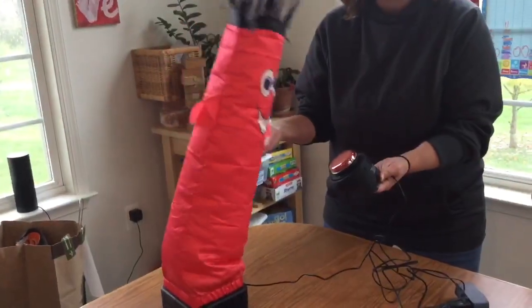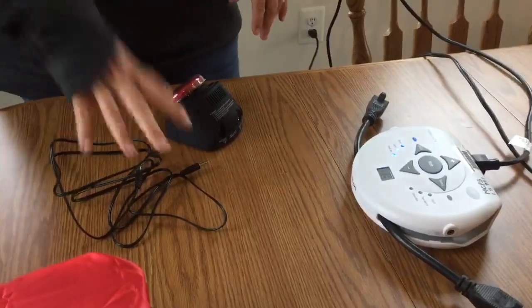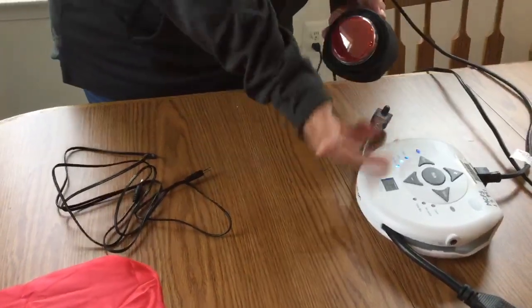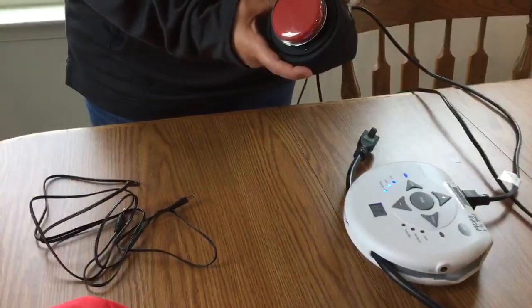And that's it. That's how you can use your step-by-step, your power link, and a fun toy to have tons of fun. Now we're ready to use our step-by-step and our power link and I'm going to demonstrate how we can turn a lamp on and off.